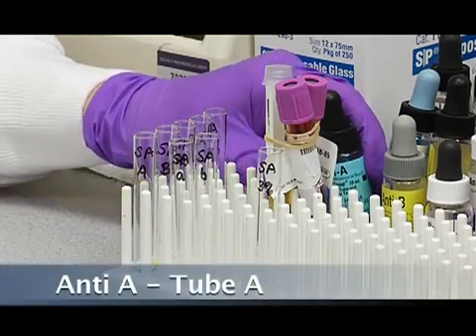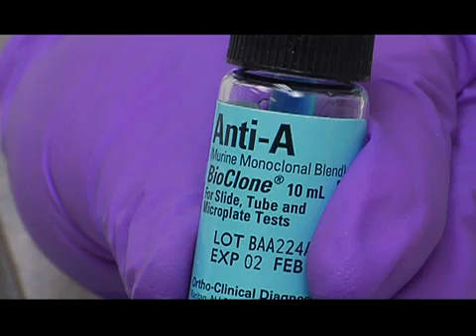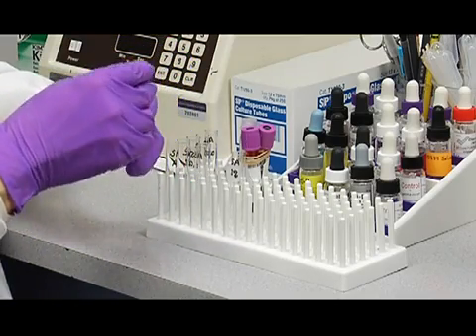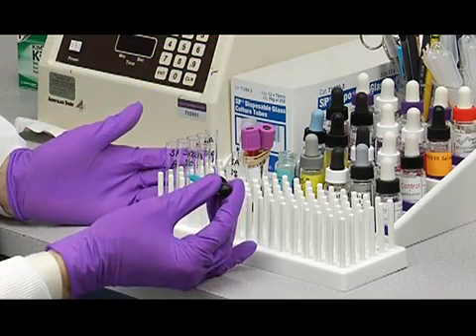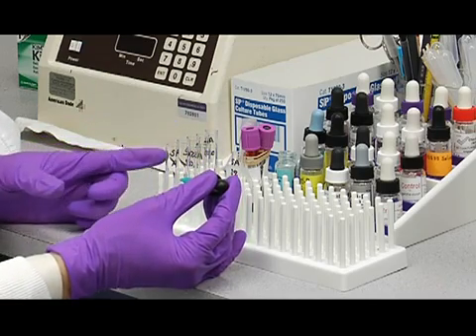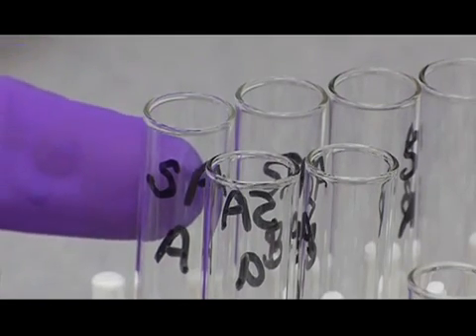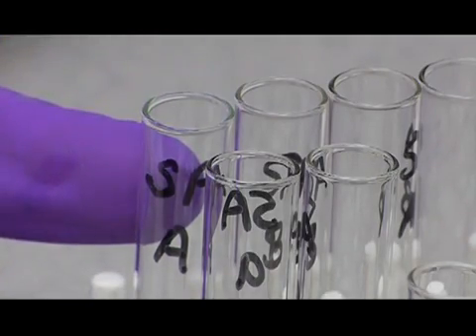After you've labeled your tubes, we'll add the reagents to the forward tubes here. So you pick up your vial of anti-A, and you'll add that to the tube labeled A. Mix your reagents. And then you want to ground your hands and your tubes, otherwise the static charge will wick a partial drop off and you won't get the right amount. So you want to lay your hands on the counter like this and then touch the tube with your opposite hand like that, and then the drop will go right down to the bottom of the tube.